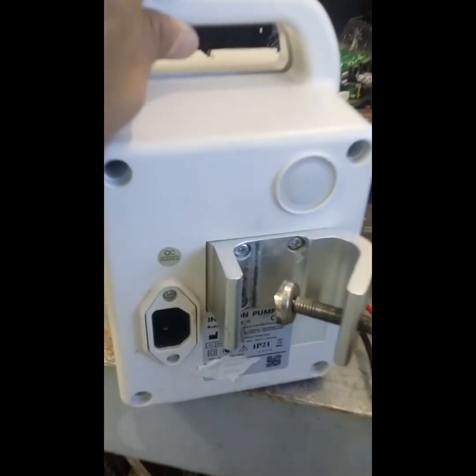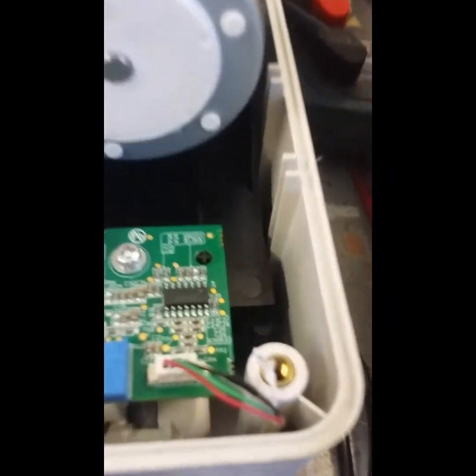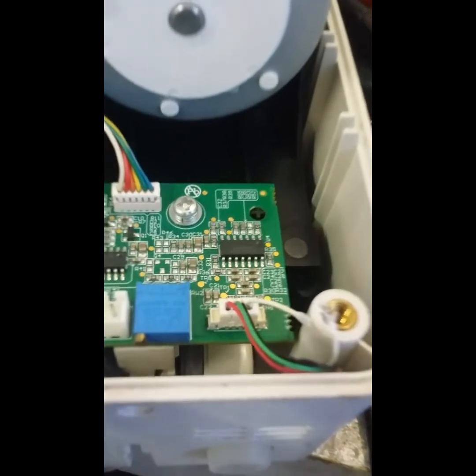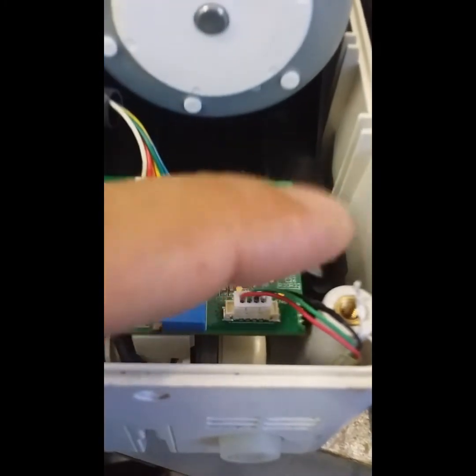As I opened up the infusion pump, I noticed something on the lower side — there's a flattened wire, a white one, just a very small wire connected to what I think is the ultrasonic sensor. Look at this — I think it has been cut. We're going to solder this one. I'll check all the cables first — I think this is the problem. This is connected to the ultrasonic sensors.